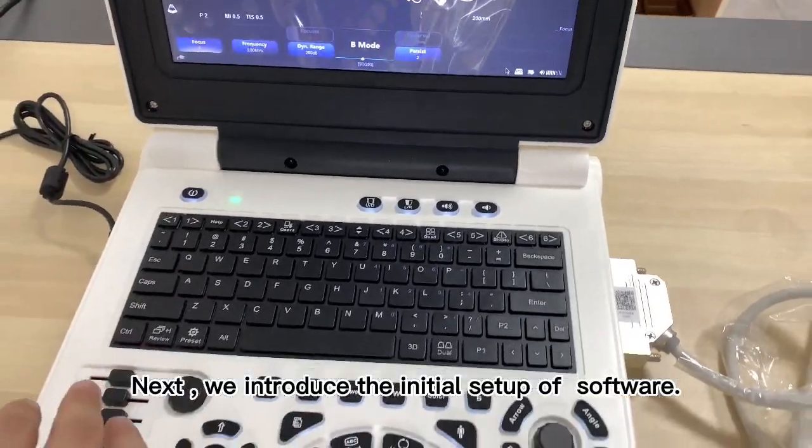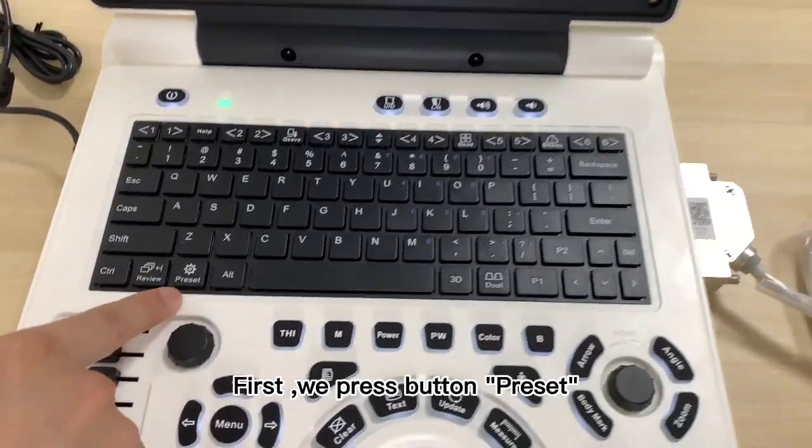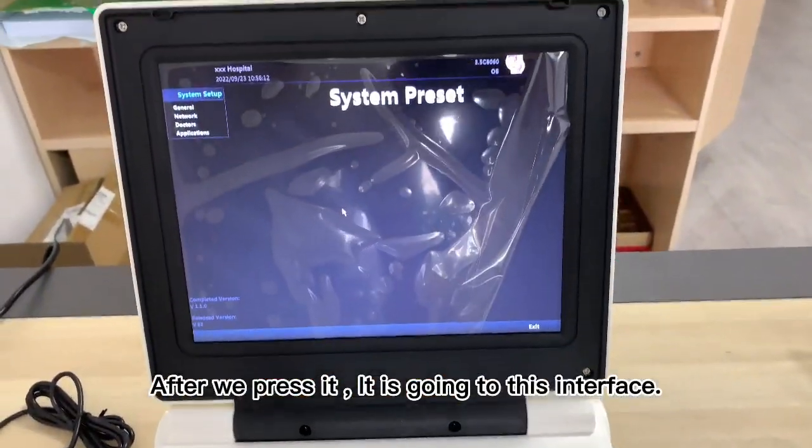Next, we introduce the initial setup of the software. First, we press the button Preset. After we press it, it goes to this interface.